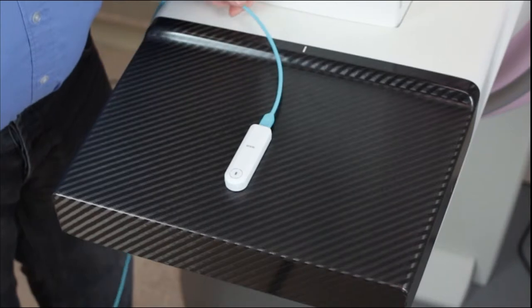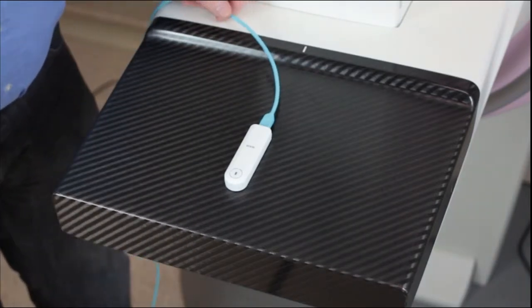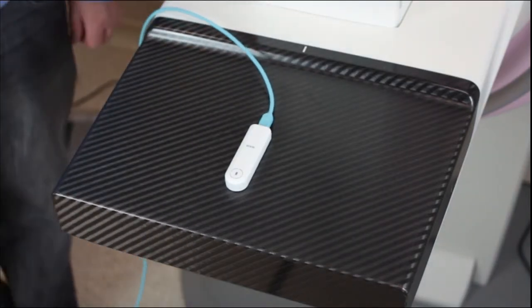Let the cable be away from the chest wall side as well. Now we are ready to make an exposure.